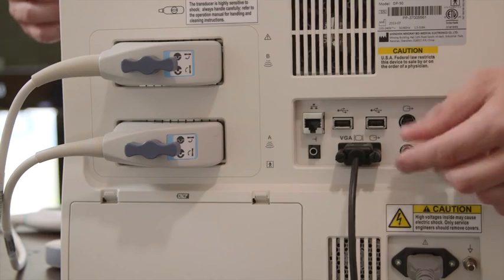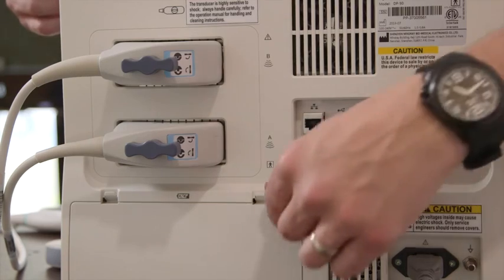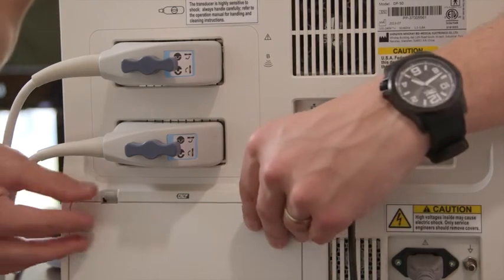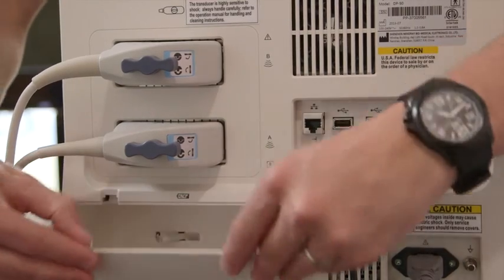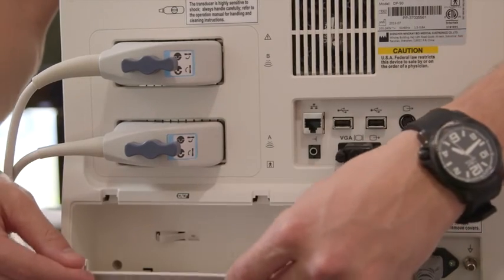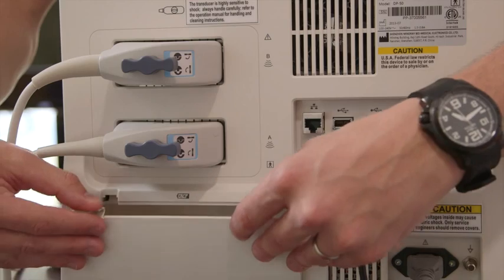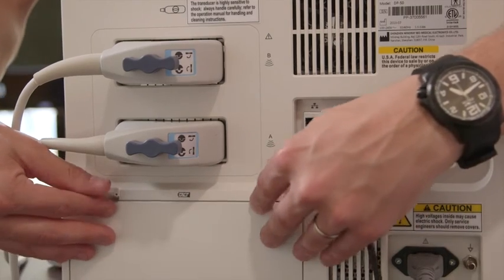You also have where your battery goes in this compartment here. It's one battery, it clicks into place, and you close the door.